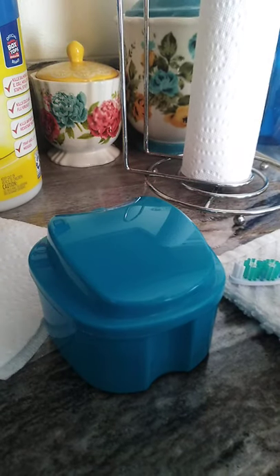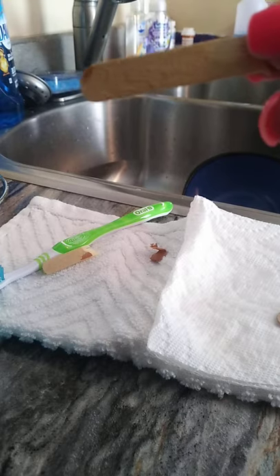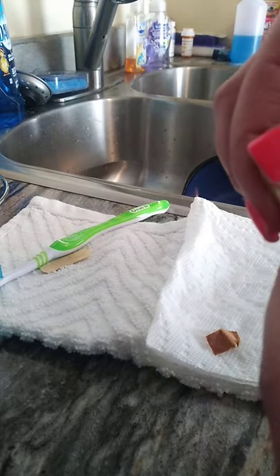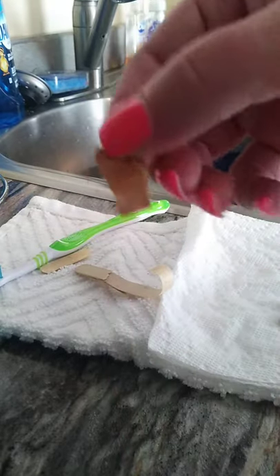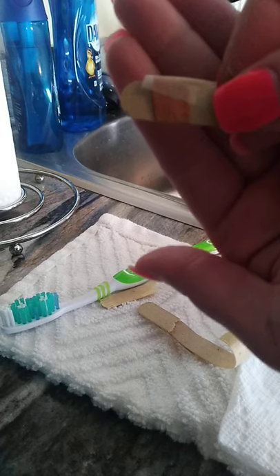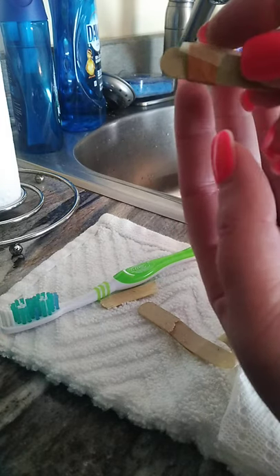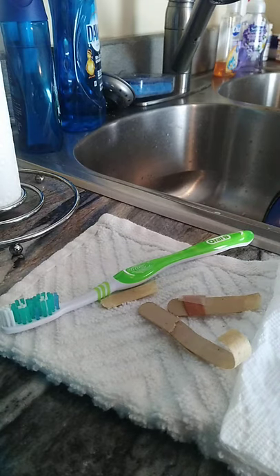I'm going to show you guys how I did it. So what I did was — where is the sandpaper part? Well, this side is also good. You know how it has two sides? It's an emery board, which is a file, and it does have two spots. I demolished it. But when you actually snap it, the paper is on both sides and it peels right off, which is what I did here. This is the sandpaper. I do not have the best lighting — I'm sorry guys, but this is literally a spur-of-the-moment video. You take pieces of the emery board, wrap it to how you need it like I did here. I put the emery board around what looks like a popsicle stick, after you take off the sandpaper part of it, and you just tape the top. So you're able to get into the frenulum area like I showed before and take some of that off. Because we all know our gums shrink and that's the crappy part.